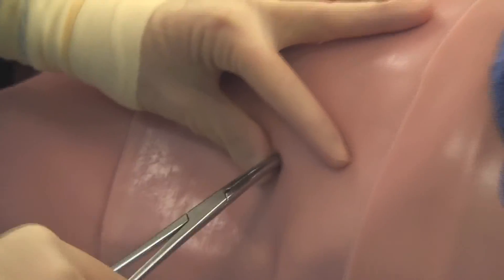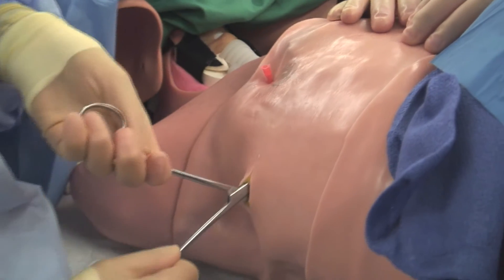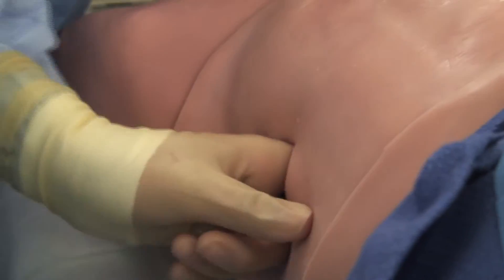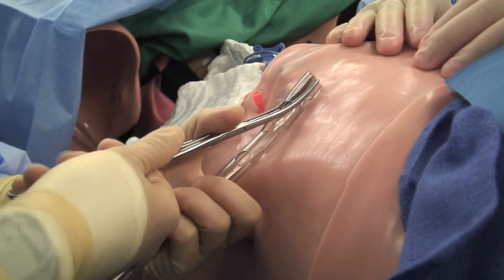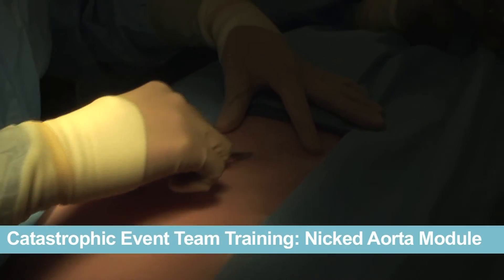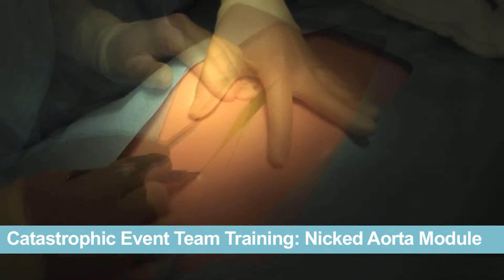Note that as a scalable platform, purchasing a TraumaMan not only means your group gets to realistically train for a number of procedures now, but continue to expand and add any additional training modules as they become available. And lastly, the full XLAP to repair a nicked aorta with internal bleeding.